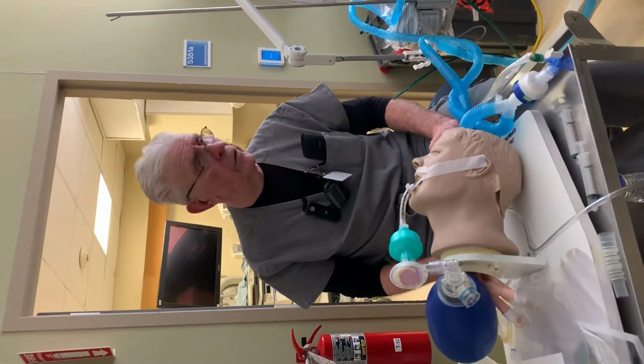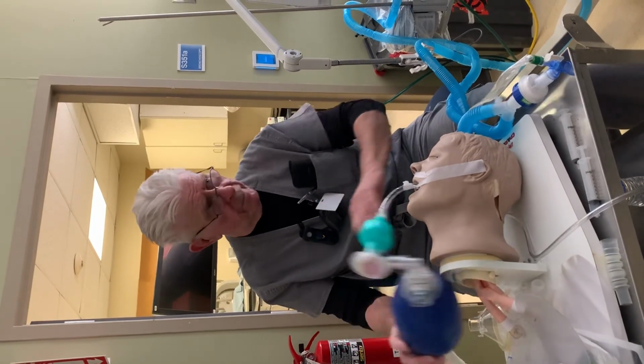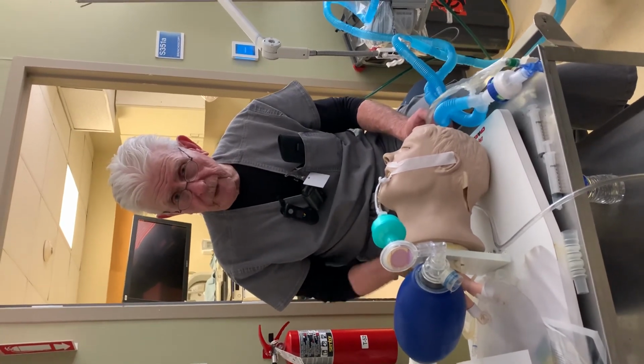No. Okay, good. Excellent. Good luck. If there's a problem with this ventilator, that's what your backup ventilator is. The bag is there for respiratory stat. Call respiratory stat, and we'll come and assist you in this problem. Thank you. Good luck to you.